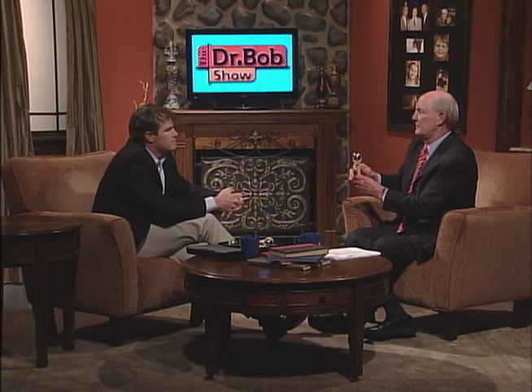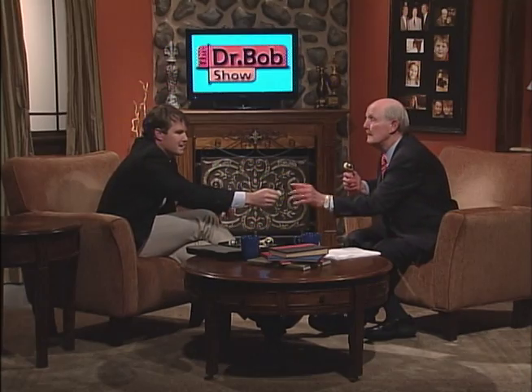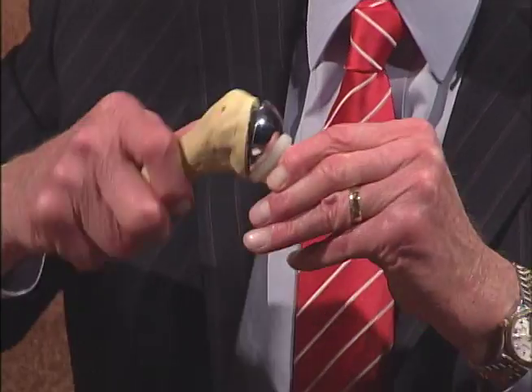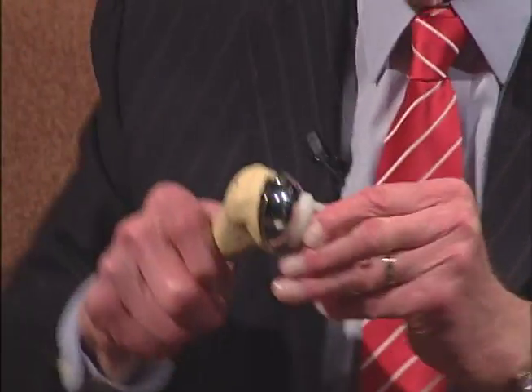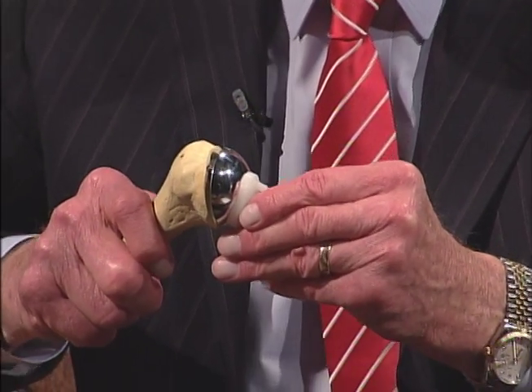So this is the arm and this is the ball right there. And you're gonna fit that into a socket. Where's the socket? Here's a plastic socket. So we've got a socket — that fits well. Rotates pretty smoothly. And so we're gonna be doing a lot at the end of two and three and four and five and six months with this.